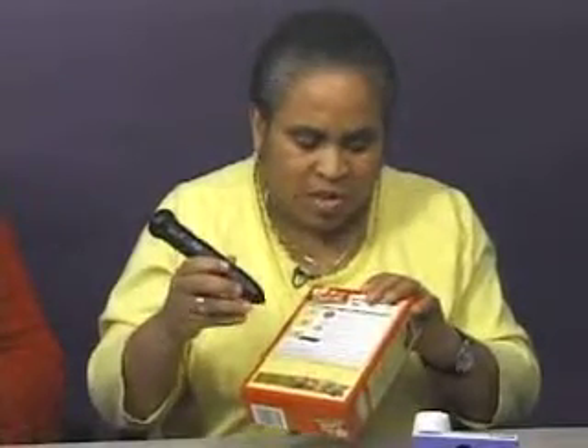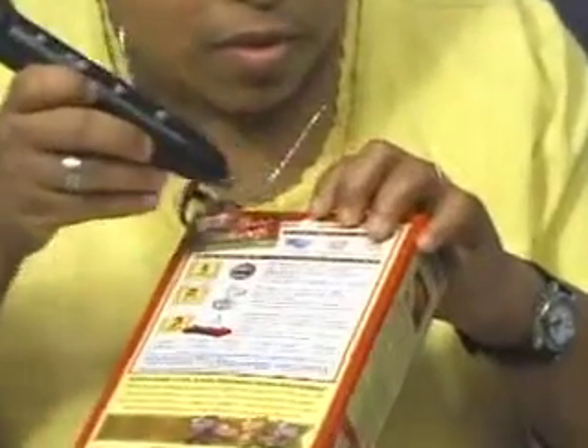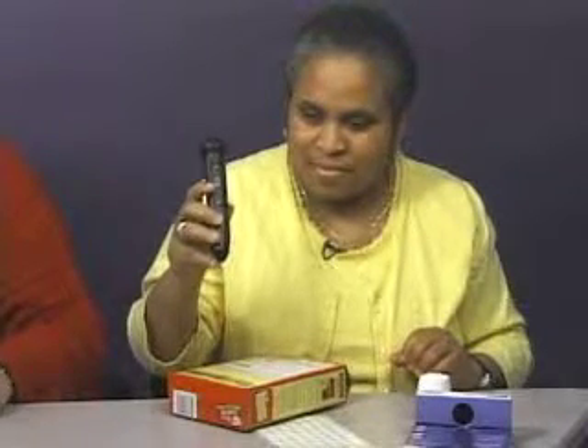Because there is no way to rewind or fast forward. Once it starts, you can possibly press the record button to stop it, but that doesn't always work. So be judicious in your labeling, folks. [Touches pen to cake box label:] Duncan Hines Pineapple Upside Down Cake Mix. Use one and a third cups water, three eggs, a third cup vegetable oil. Don't forget to preheat the oven to 350 degrees.